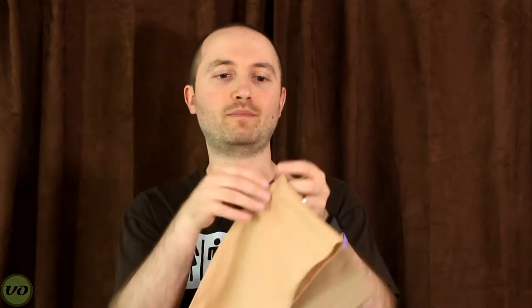Compared to the classic wrap, this one is narrow. I've got the classic wrap and their swim wrap here, and you can see the difference in size. Which means you won't have it bunch up on you, and you won't have to fold it in half if you're going to be out on a beach or in a bathing suit. The material used in the swim band is quite different — it's made of 84% nylon and 16% lycra. It is quite stretchy and comfortable, and the idea behind that material is that it will dry faster when it gets wet.